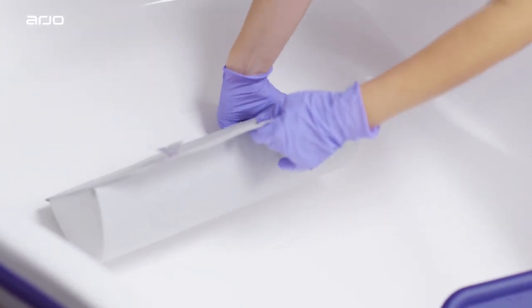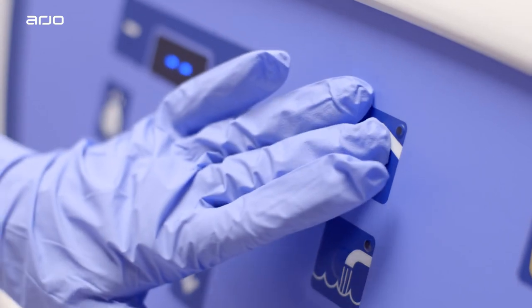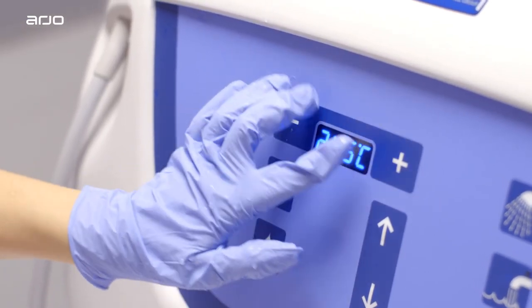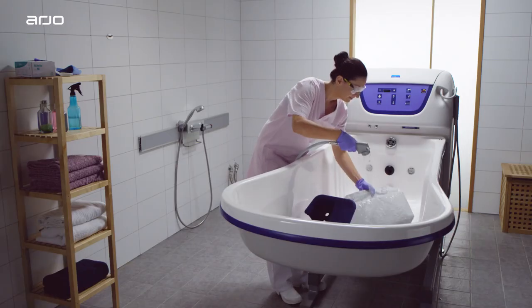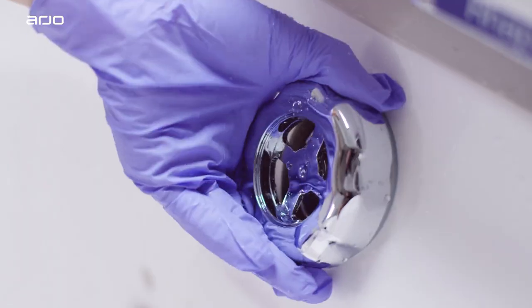Remove any loose items such as the pillow. You may then activate the shower and adjust the temperature to 25 degrees Celsius. Rinse all surfaces with the shower to remove any soap residue. Turn off the shower and close the drain.